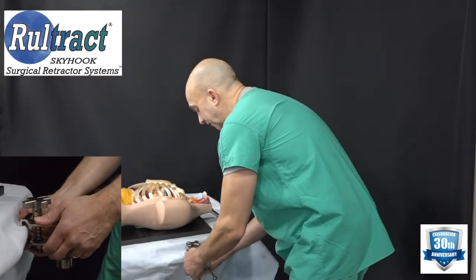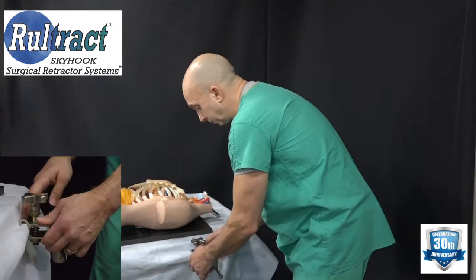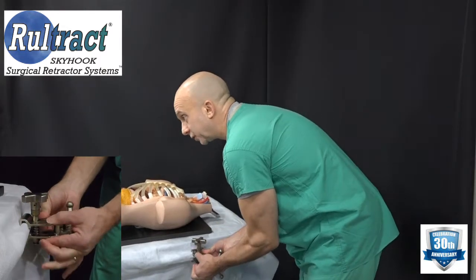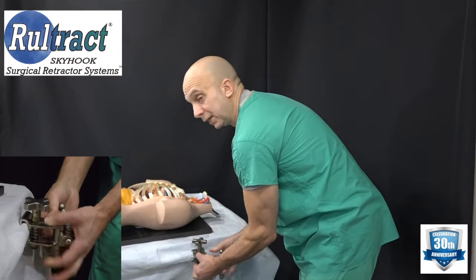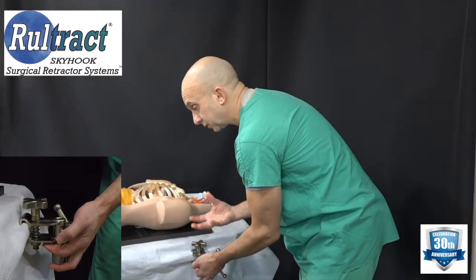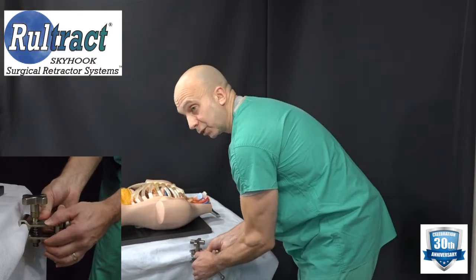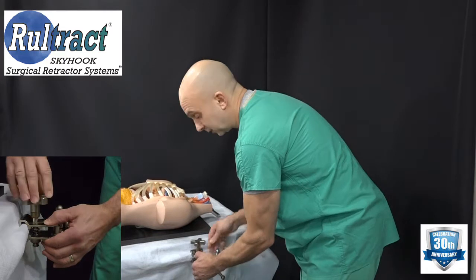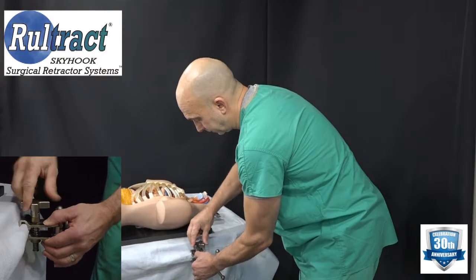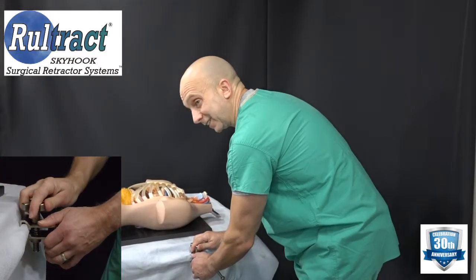Feel for the location of a bolt, then ideally clamp just before the bolt. Now squeeze the jaws closed and then tighten the knob. You don't want to place it on the bed rail and then turn the knob to bring the jaws together — you want to squeeze the jaws closed first and then tighten the knob. Tighten it as tight as you can get it.